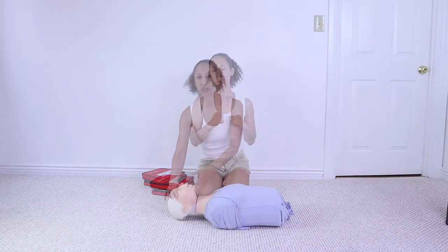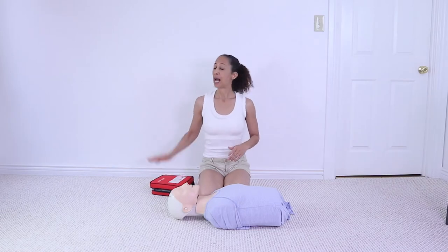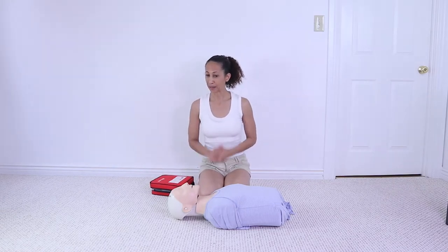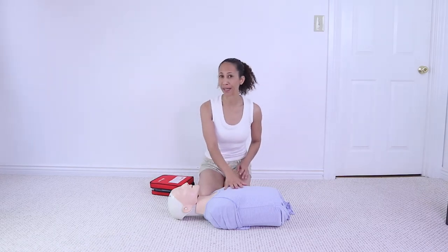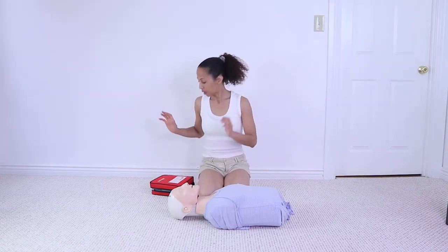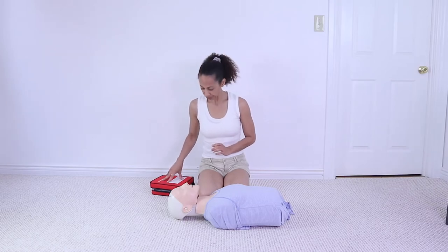If there's no breathing, get an AED. Ask a bystander to get an AED. While the person is getting the AED, start performing CPR. If you are by yourself, go get the AED.